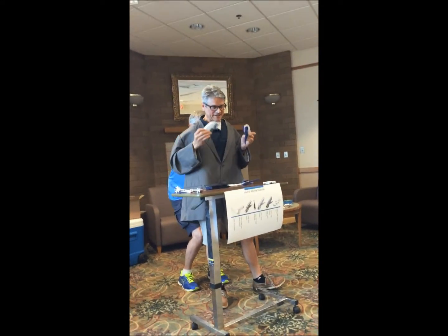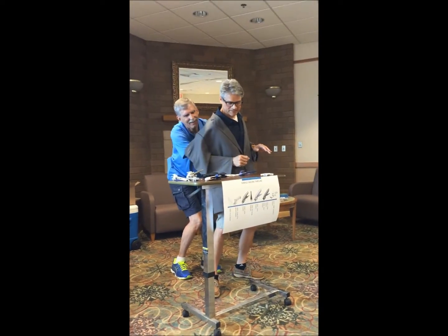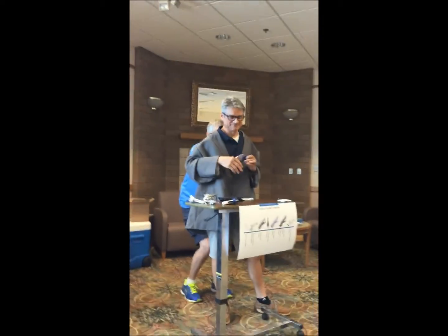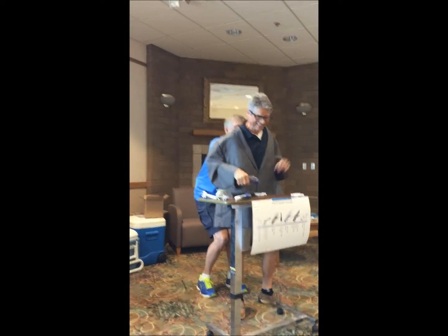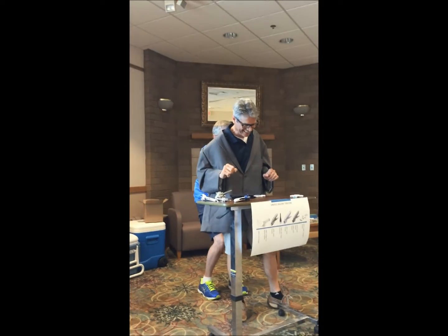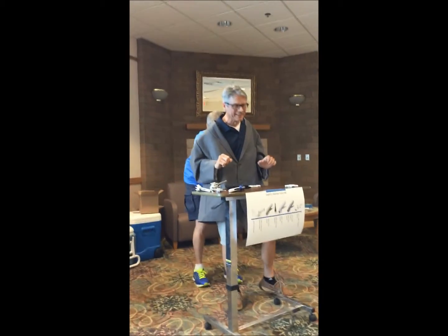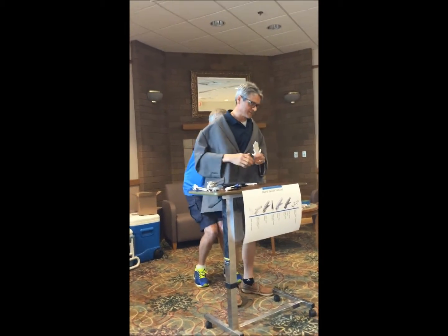You can stand back down, Dave. So that's it. Jen says pick up that clear one and show it to everybody. Go ahead and fire that — but don't put your face down. Alright, so now we're moving on to the next one, which is the shorty stapler. Don't throw that one when we're done.